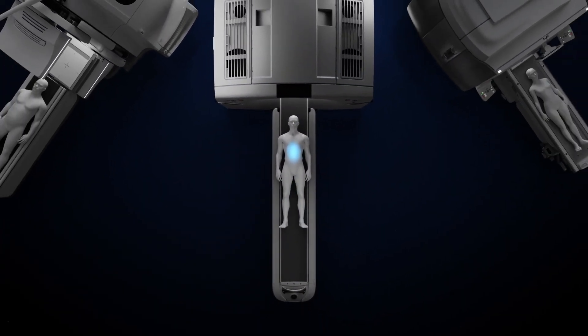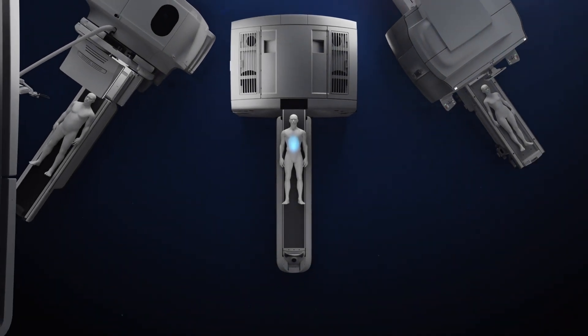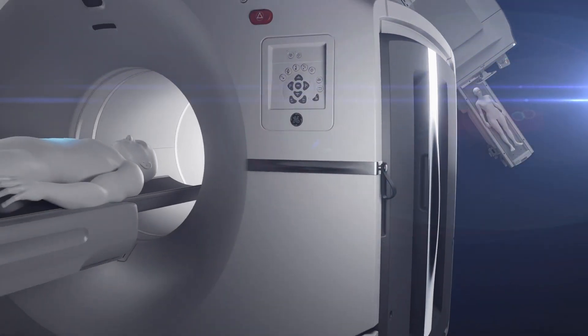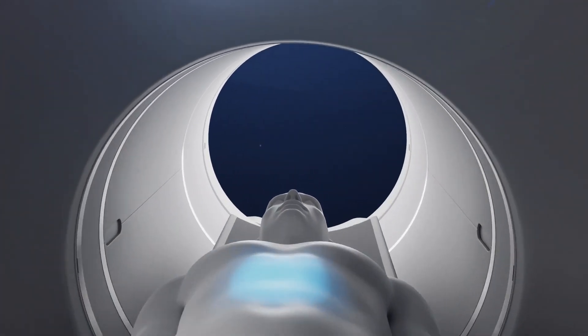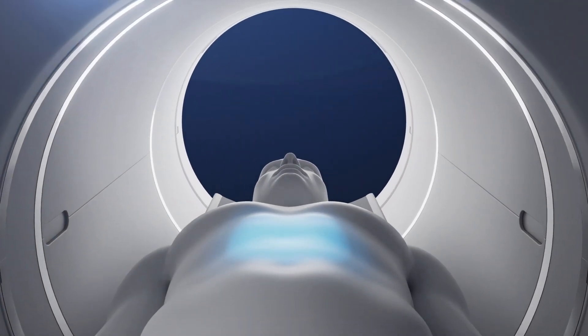Our cutting-edge imaging systems enable the best possible patient outcomes for more people in more places, and deliver high-resolution and high-sensitivity images.